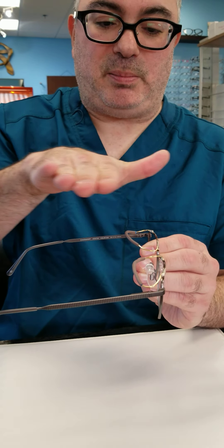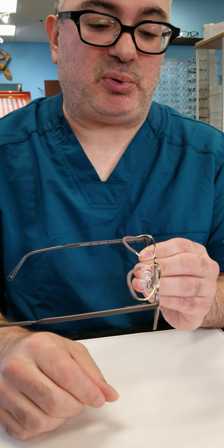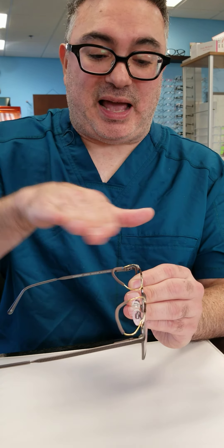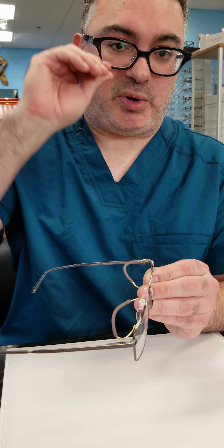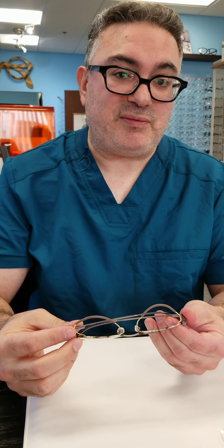The last adjustment is a little harder to explain, but essentially it boils down to this. It's preferable to have the ptosis crutch bow outward a little bit, because some people have their eyes set in, and if it goes straight out it will hit the brow — there's not a direct line toward that part of the eye. Having it bow allows it to reach that part of the eye without hurting the section right over here. Most people will not have to do this, but if needed, you want it to bow so that when you move it up and down your brow is not being hit by the crutch.